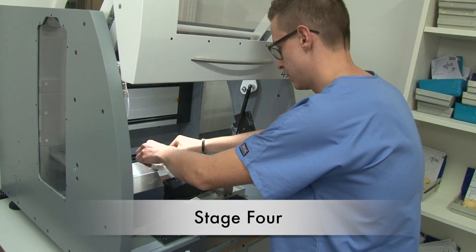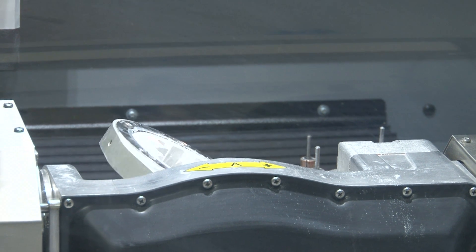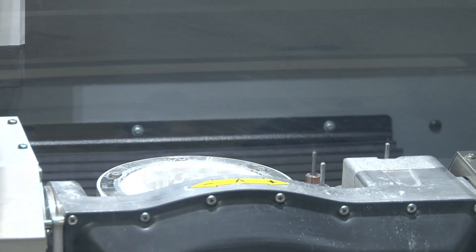After that, in the control milling unit software, the ISO file is opened and the disc is placed into a holder in the machine chamber and the milling process begins.